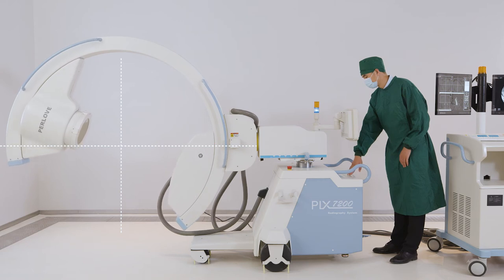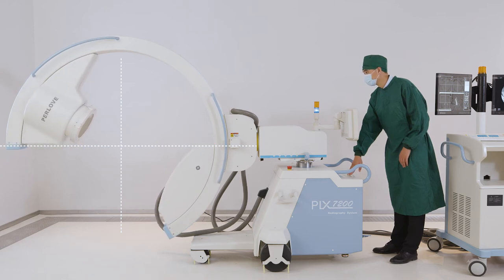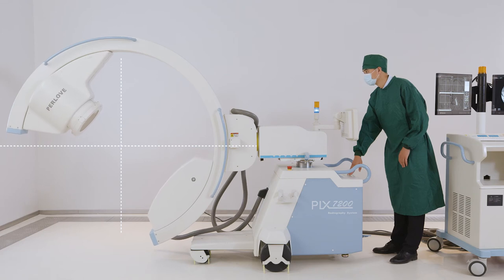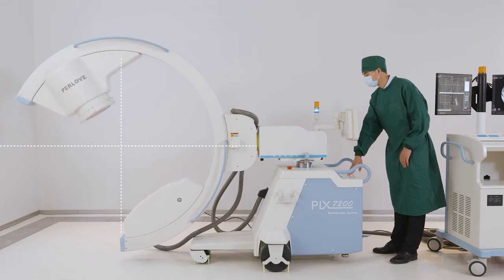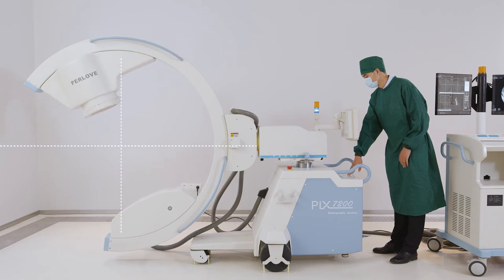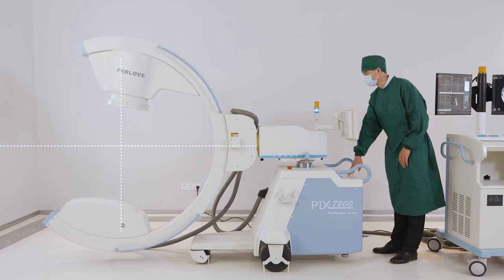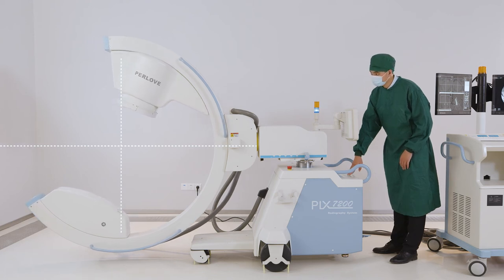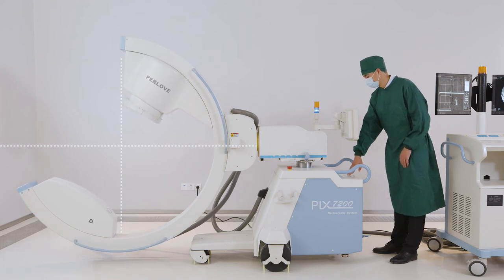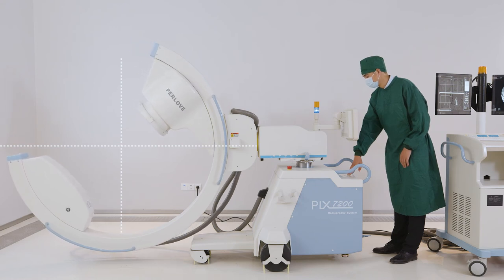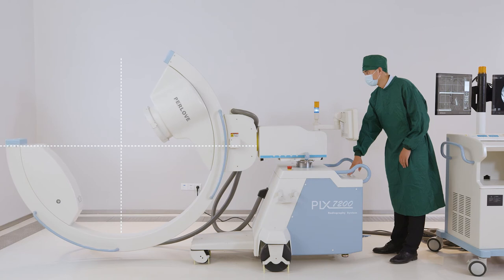Based on the two-dimensional x-ray image, the cone beam technology is used to collect isotropic volume data and generate a CT-like imaging during the operation to realize the three-dimensional mode of the bone intraoperative reconstruction. There is no need for preoperative three-dimensional reconstruction, and the patient's images can be obtained at any time during the operation.